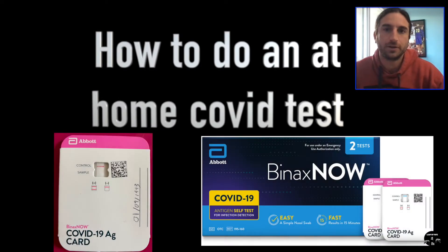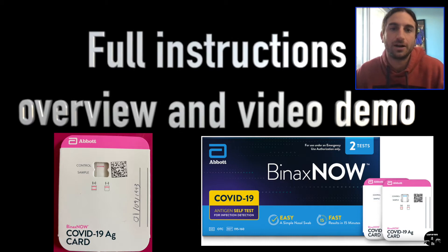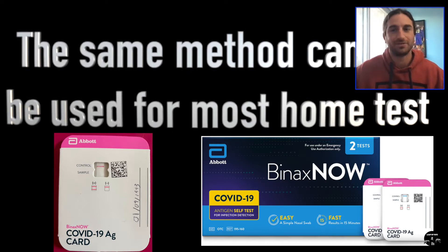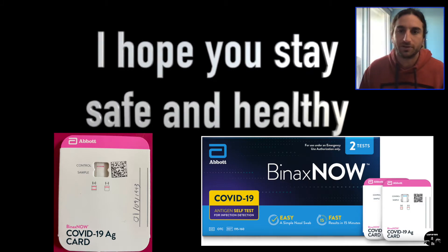What up y'all, Randy Silva here — Leap of Fate. We're going to take you through how to do a BinaxNOW at-home COVID test today. We'll talk through the instructions and then show you the demo I did on myself. I didn't have COVID, flew to Mexico, had to take a test to come back, so I videotaped myself and let's get it out there for y'all.